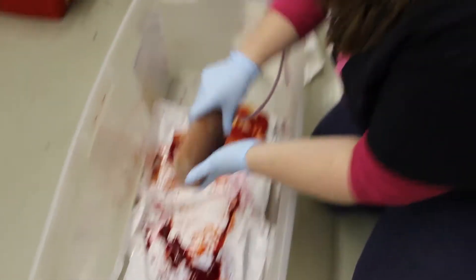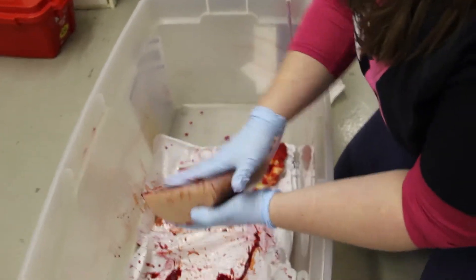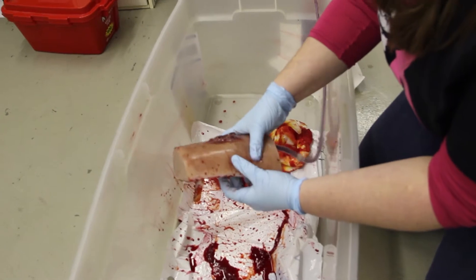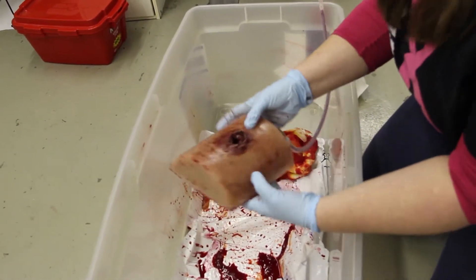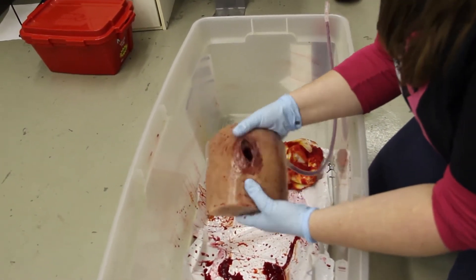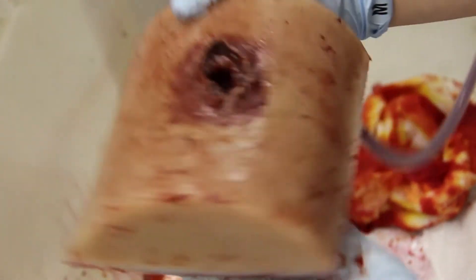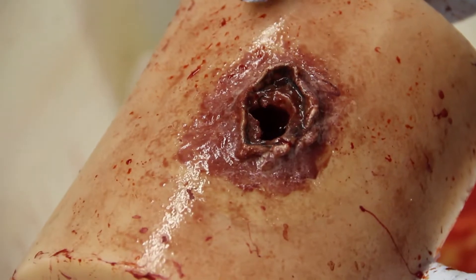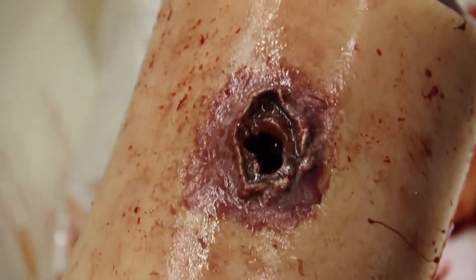The company that makes this is called Luna, and you can order all kinds of stuff. It's like a ballistics gel, so it actually looks and feels just like a human, and it's kind of awesome like that. You're telling me there are people out there that can make this kind of stuff for a living? Oh yeah, this could be your job. And this is just to simulate a gunshot or a knife wound. There's all kinds of things — burns, abrasions, even an entire torso made out of ballistics gel that we could use to help train.